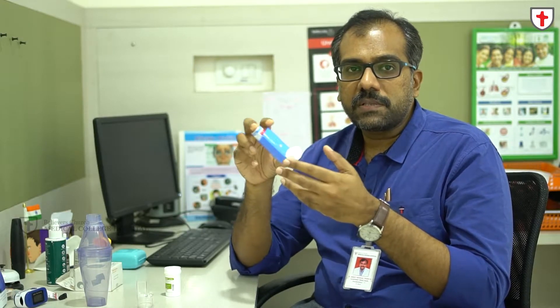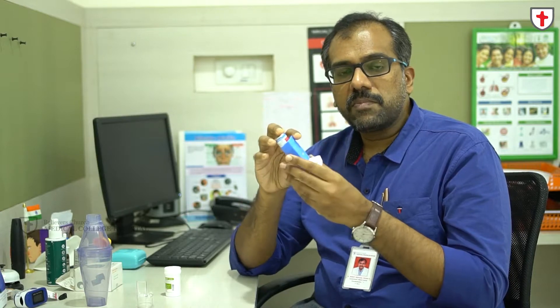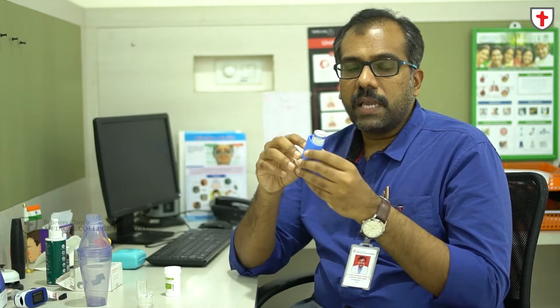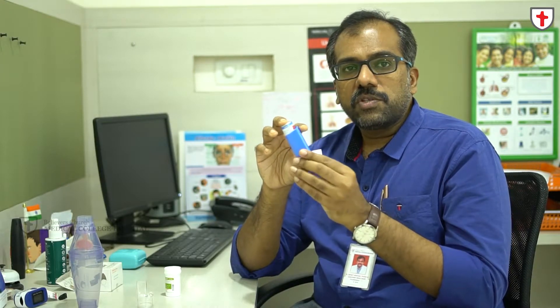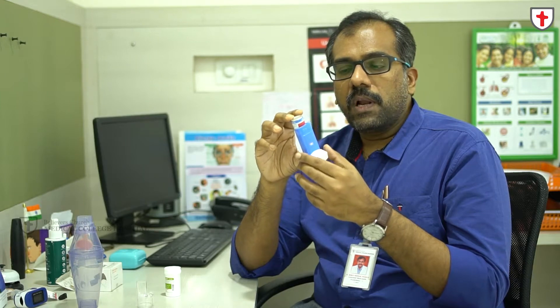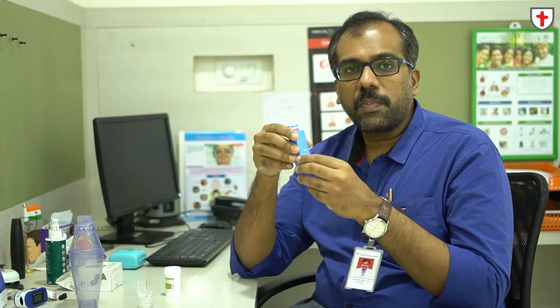Now, how to take a meter dose inhaler. I won't be demonstrating how to take a nebulization because all of us will be well versed with this. The MDI comes in handy because we will have to use it on our own. The medicine is available in this canister, and it comes along with a HFA or hydrofluoroalkane, which is the propellant. The main function of the propellant is to push the medicine.